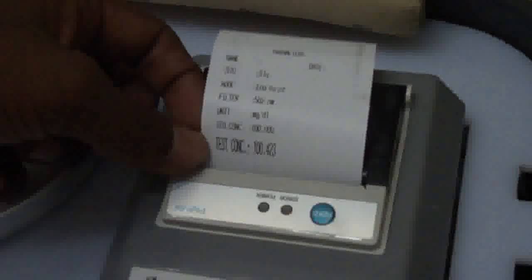Here you can press enter and you will get the result in a printed format. The patient test concentration and the test details are mentioned in the format. That's all about the testing — you only need 3 seconds for the test procedure, and we deliver high accuracy. Thank you.